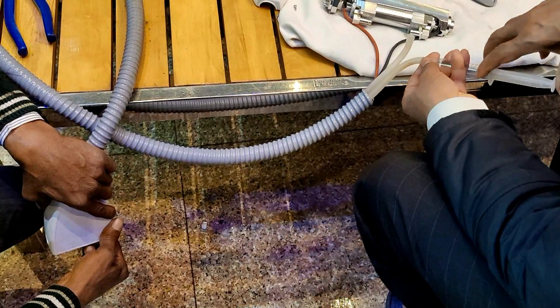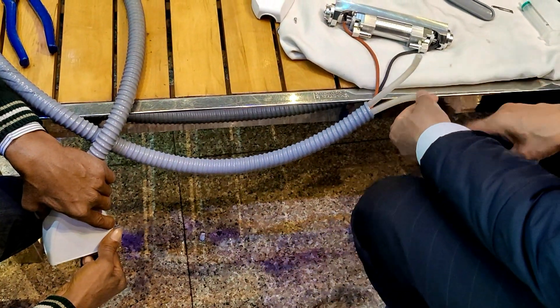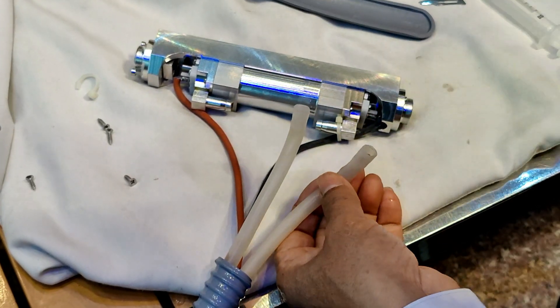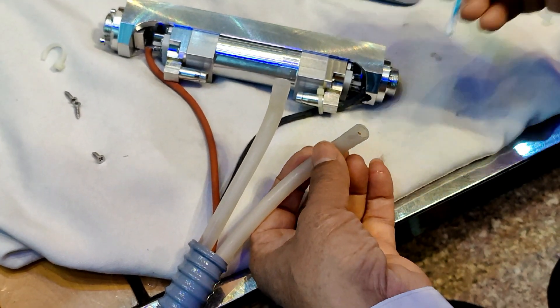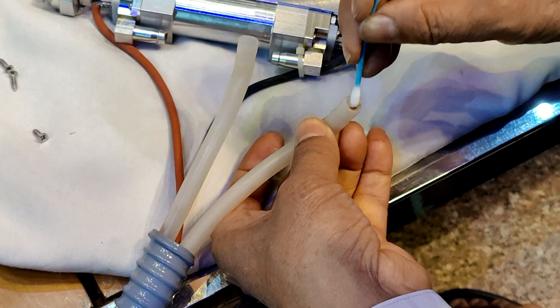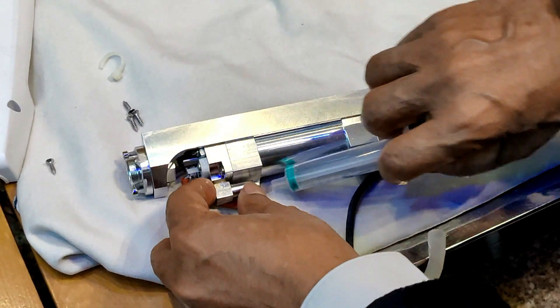Now this is clear — in fact this tube was blocked. Now connecting it again, we can notice that there is something sticking here. These deposits are responsible. Now this is clean.